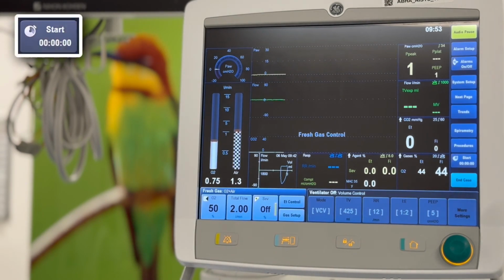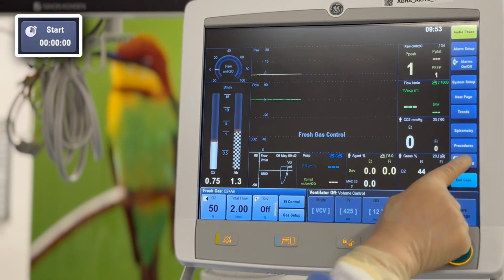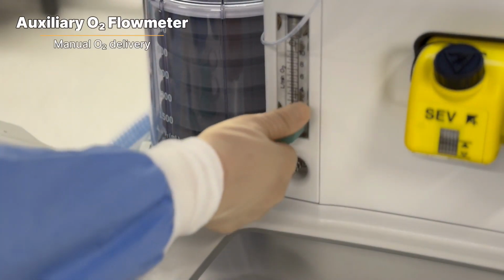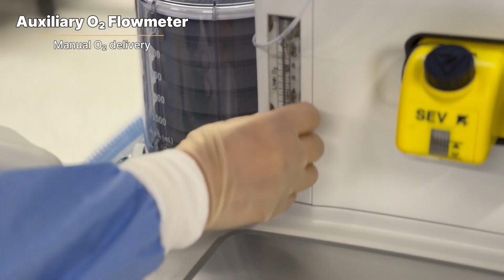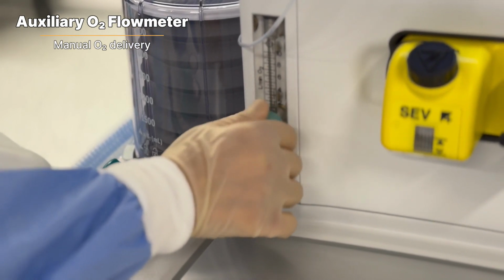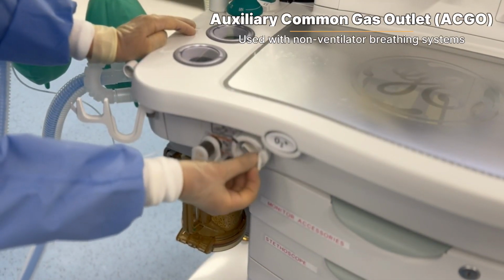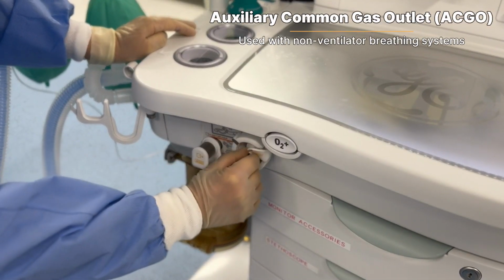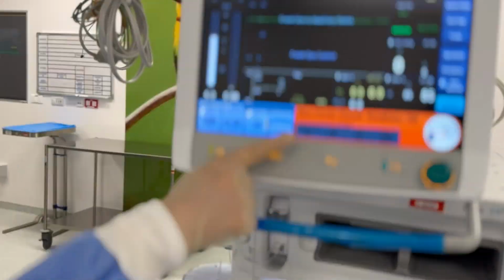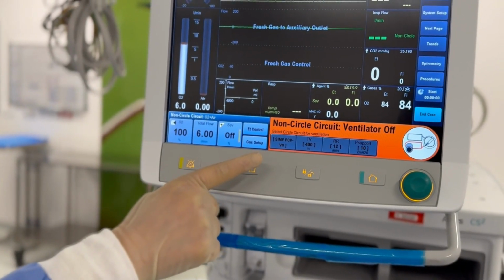To start a timer, press the Start Timer button located below the Procedures key. The Aisys CS2 has an optional single-port auxiliary oxygen flow meter for nasal cannula or mask use, separate from the main system for independent delivery. Set the ACGO position to direct fresh gas to the ACGO port, which can supply an auxiliary manual breathing circuit like a Mapleson or Jackson-Rees circuit.